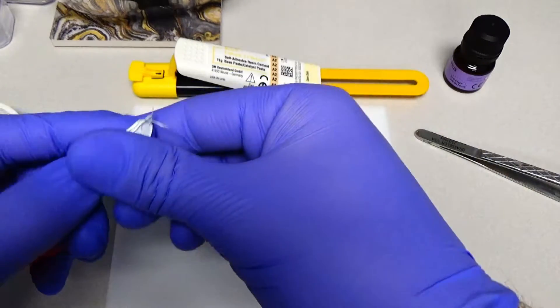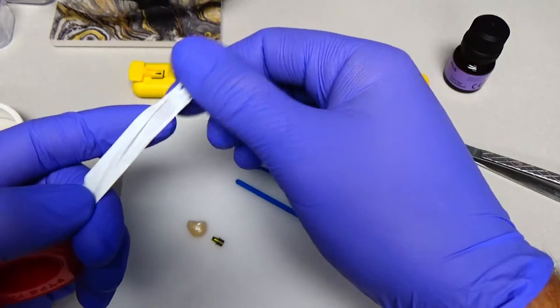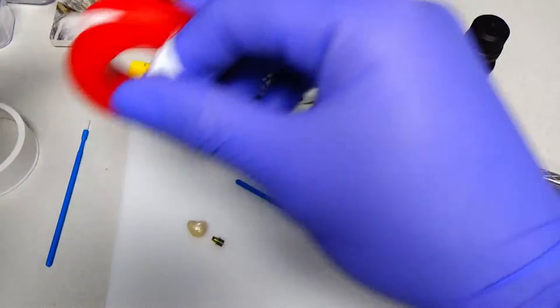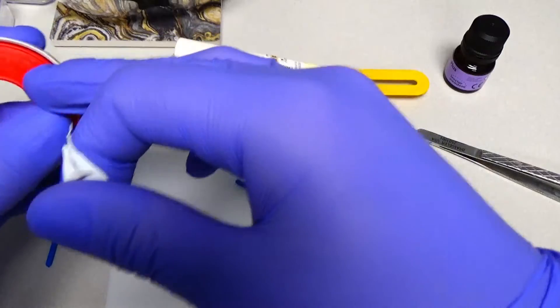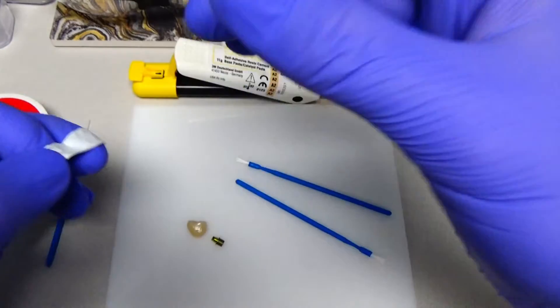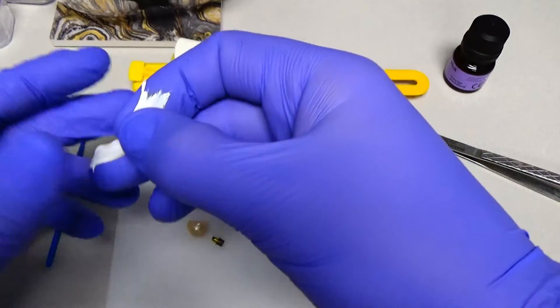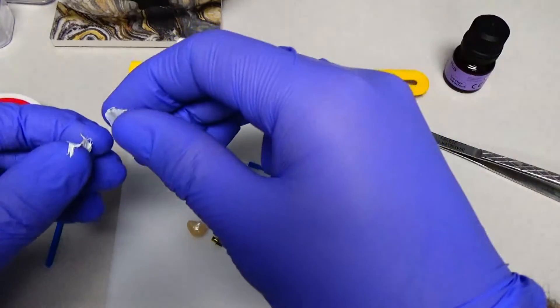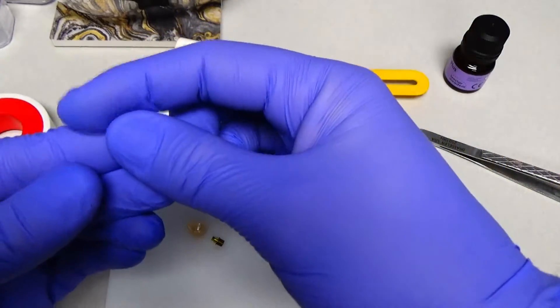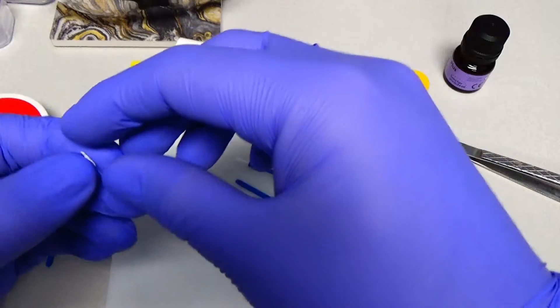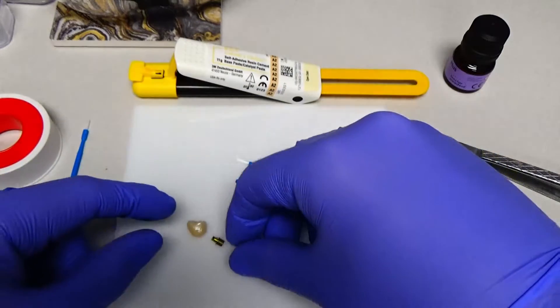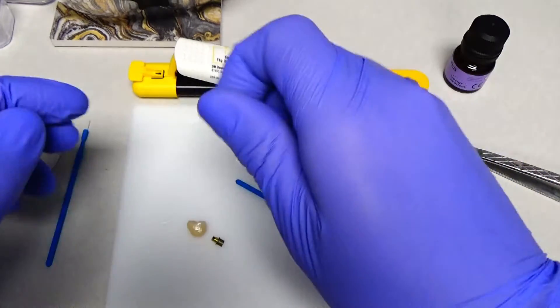What happens sometimes, sometimes you'll get a crown back and you will try to screw it into the implant. And in the process of tightening the screw, if there's a little resin tag on top of where the screw actually rests on the inner portion of this titanium insert, you won't be able to get that proper preload to place. And sometimes you'll tighten it and it'll feel tight, but then the patient will come back later with the loose crown. And that was because the resin is now either broken off or chipped or something, that little resin tag that's on the top of the channel there. And so that's an issue that you can avoid if you put Teflon tape inside the channel and then pull it out and I'll demonstrate that.